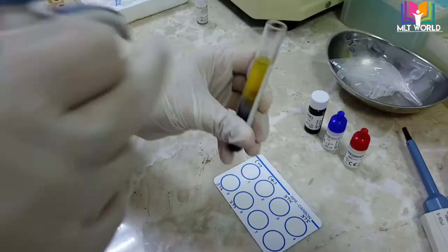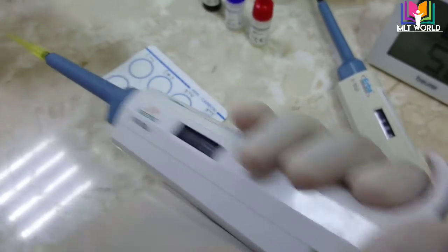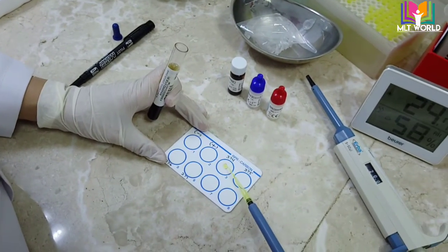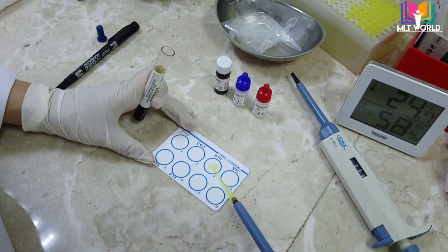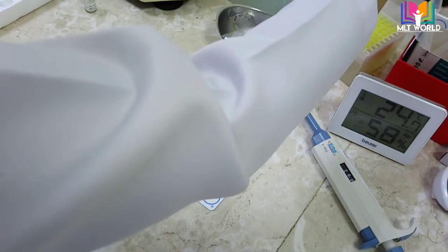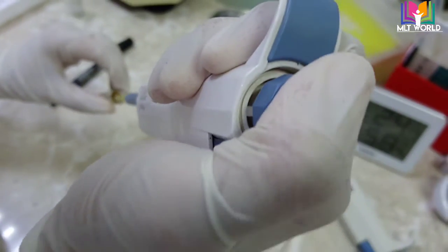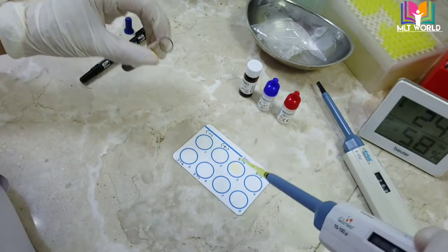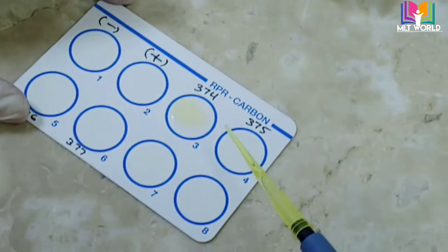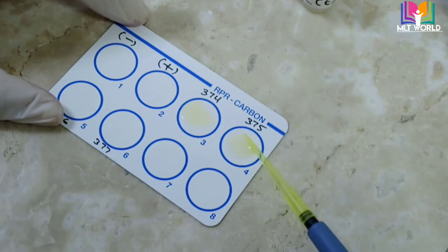Next, check the method — qualitative and semi-quantitative methods — and how much sample and reagent are required for each. In this video I will show you the qualitative method. To perform the qualitative method, we need 50 microliters of sample. The sample should be serum — clear serum, not contaminated or hemolyzed. The serum must be clear.